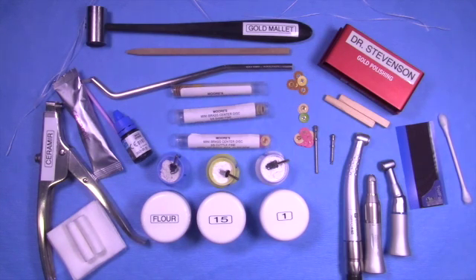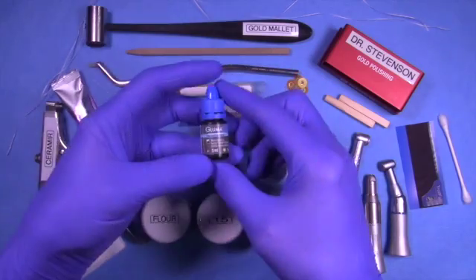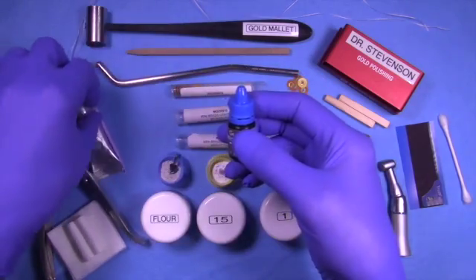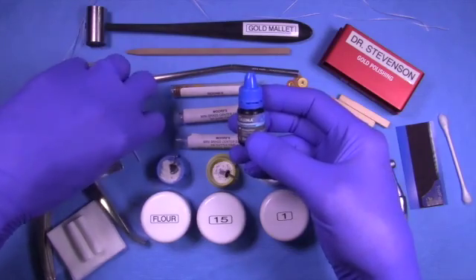I'm going to go through all the parts so you can set up a gold cementation tray in your practice. Most things here are easy to obtain. There are a few things a little more difficult, and I'll talk about those and perhaps give you some alternatives.